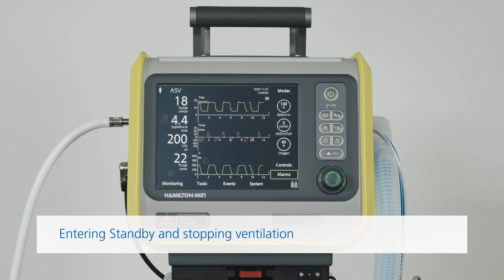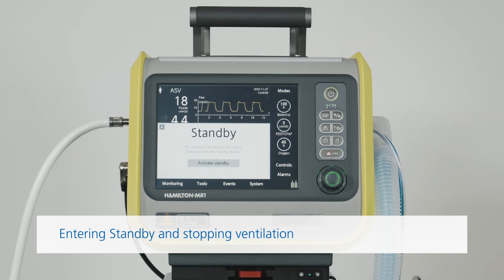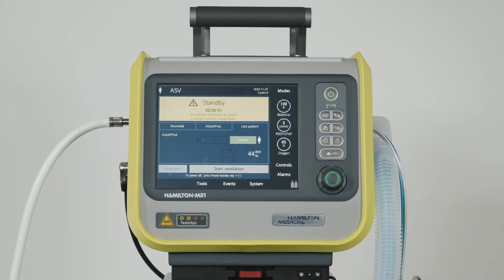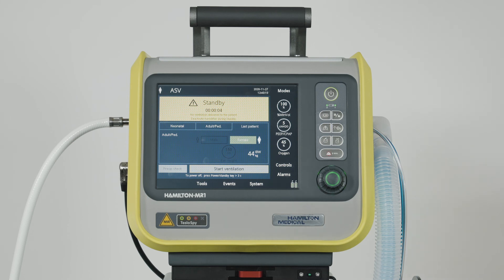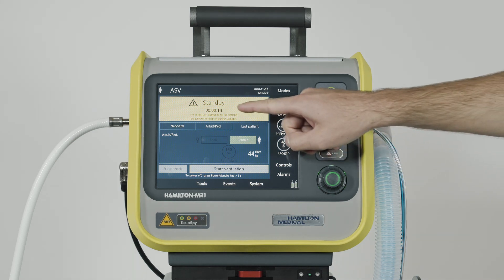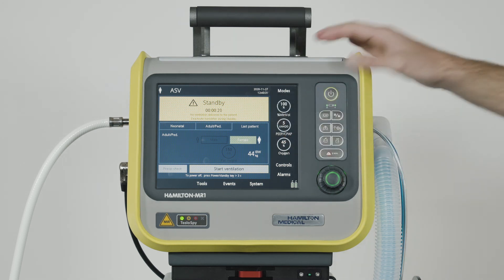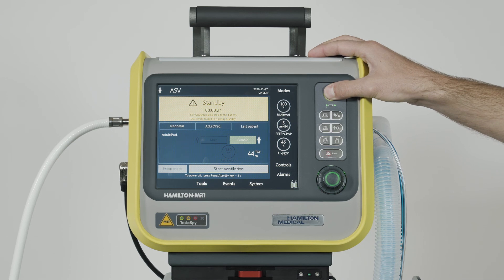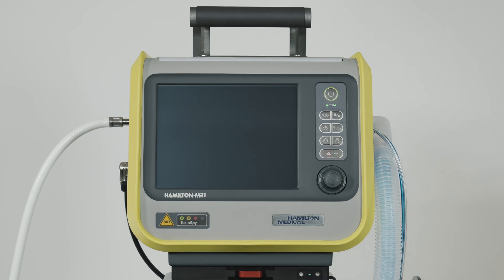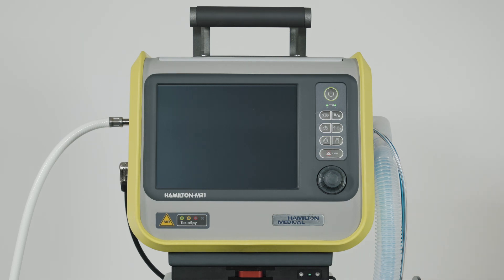To stop ventilation, press the Power Standby key. Then touch Activate Standby. The ventilator will enter Standby mode and the yellow counter shows you how long it has been in Standby for. To turn off the ventilator, press and hold the Power Standby key for about 3 seconds. It's best to keep the ventilator connected to its primary power source to maintain the battery charge and extend the battery's life.